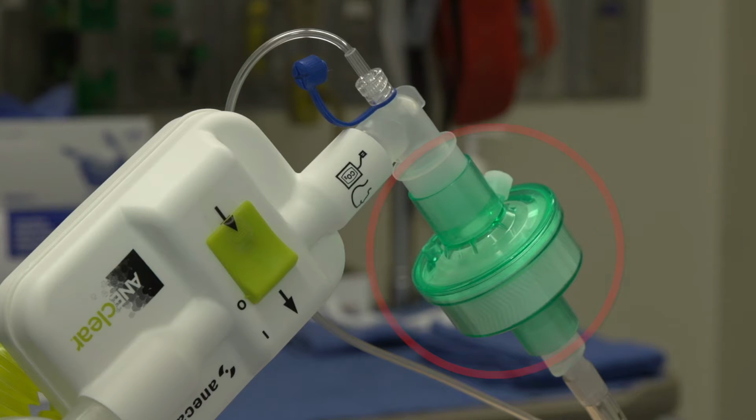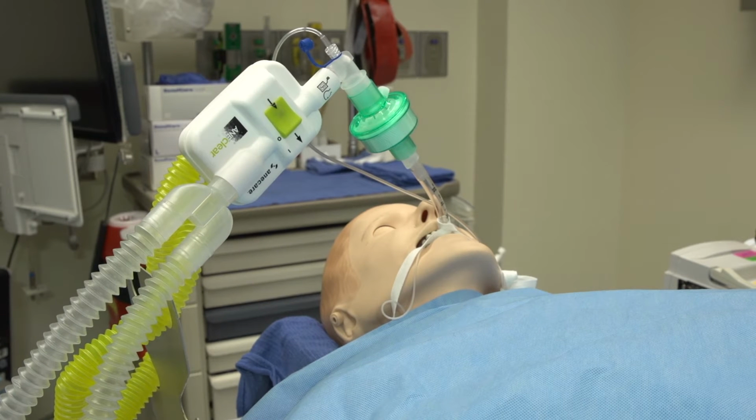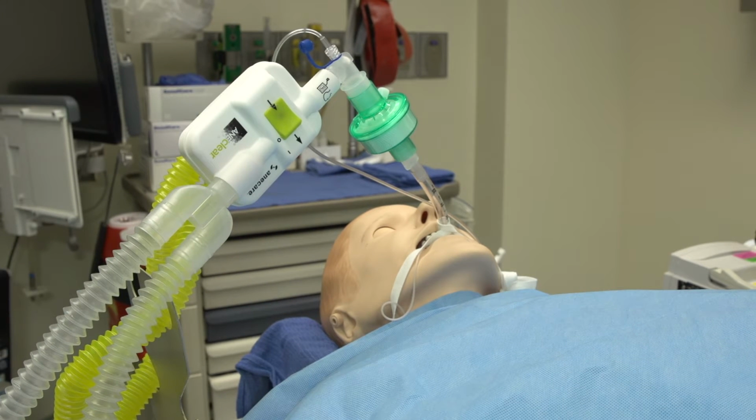If the sampling port is inadvertently placed between ANEclear and the breathing circuit, ANEclear will still function properly, but the gas readings displayed of actual inhaled and exhaled gas concentrations on the monitor will be inaccurate. The placement of the heat moisture exchanger, or HME circuit filter, has minimal effect on the performance of ANEclear, but the performance of the HME filter is improved if it is closer to the patient. Therefore, it is best to add an HME or bacterial filter between the patient and ANEclear if desired.